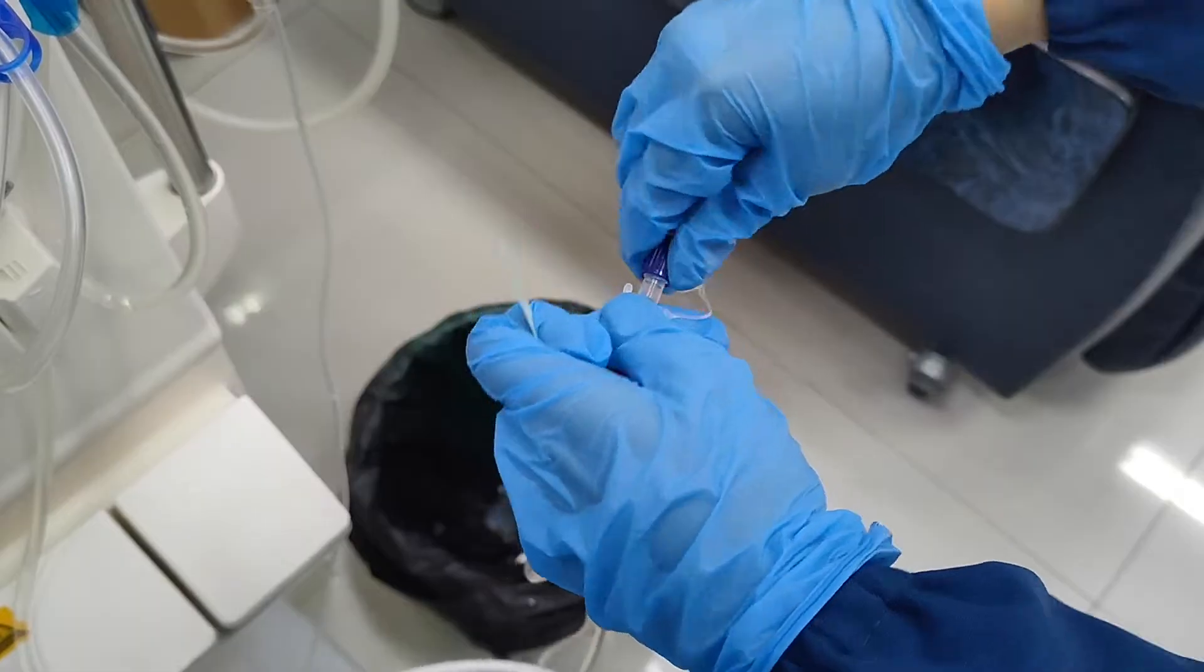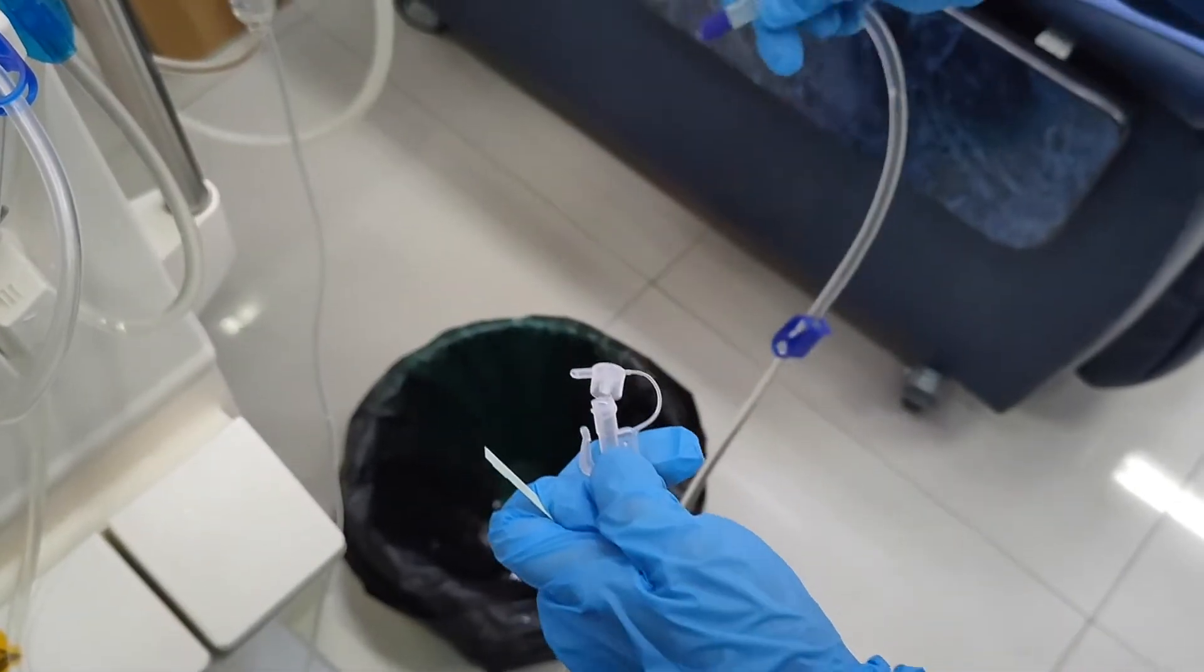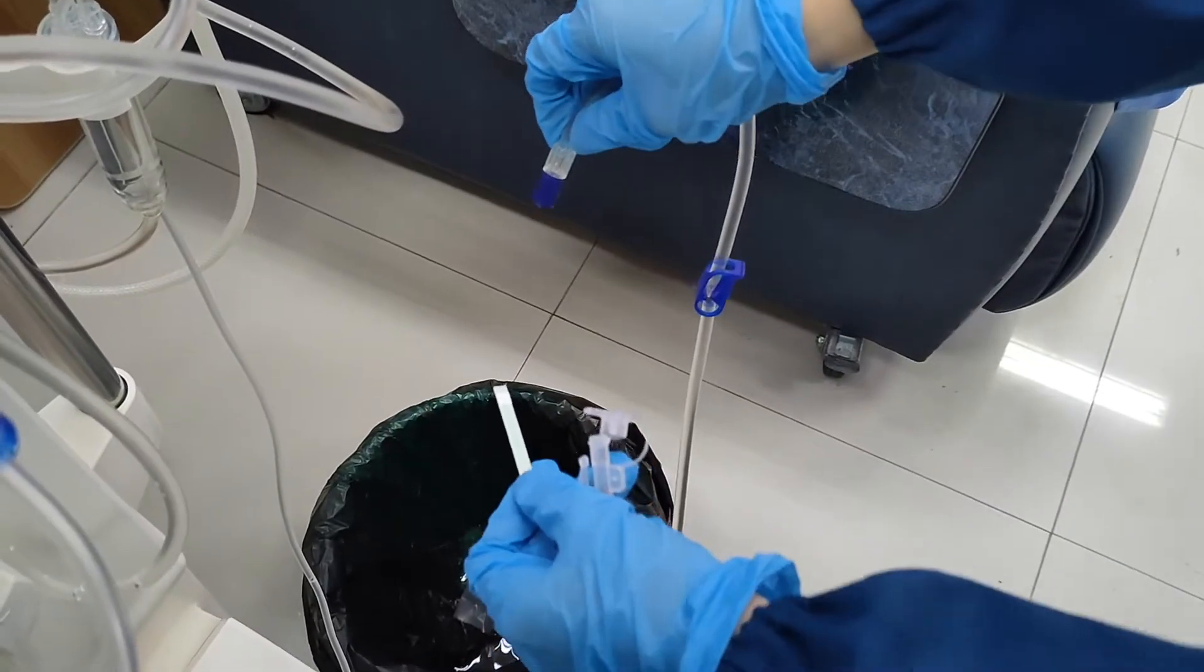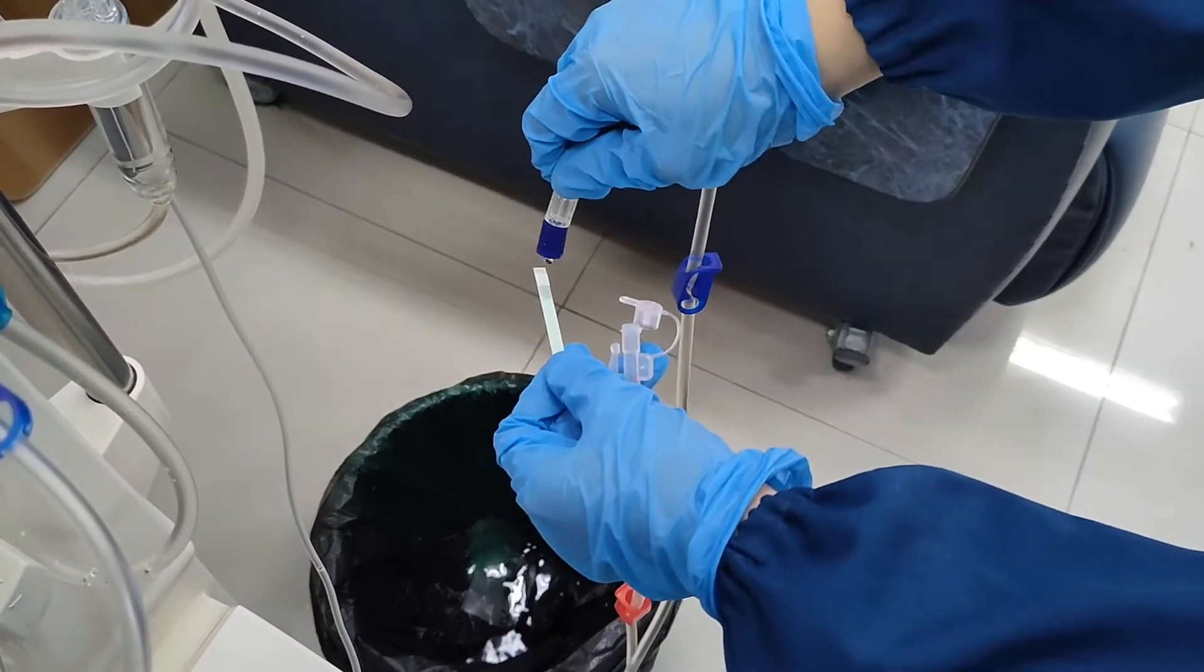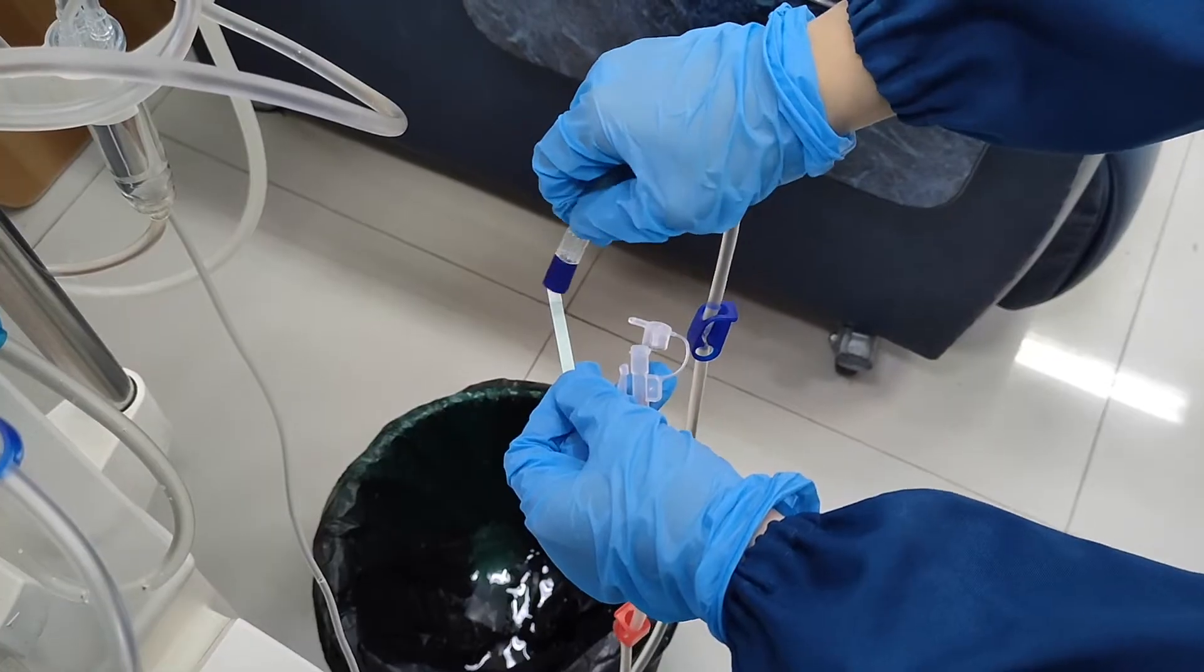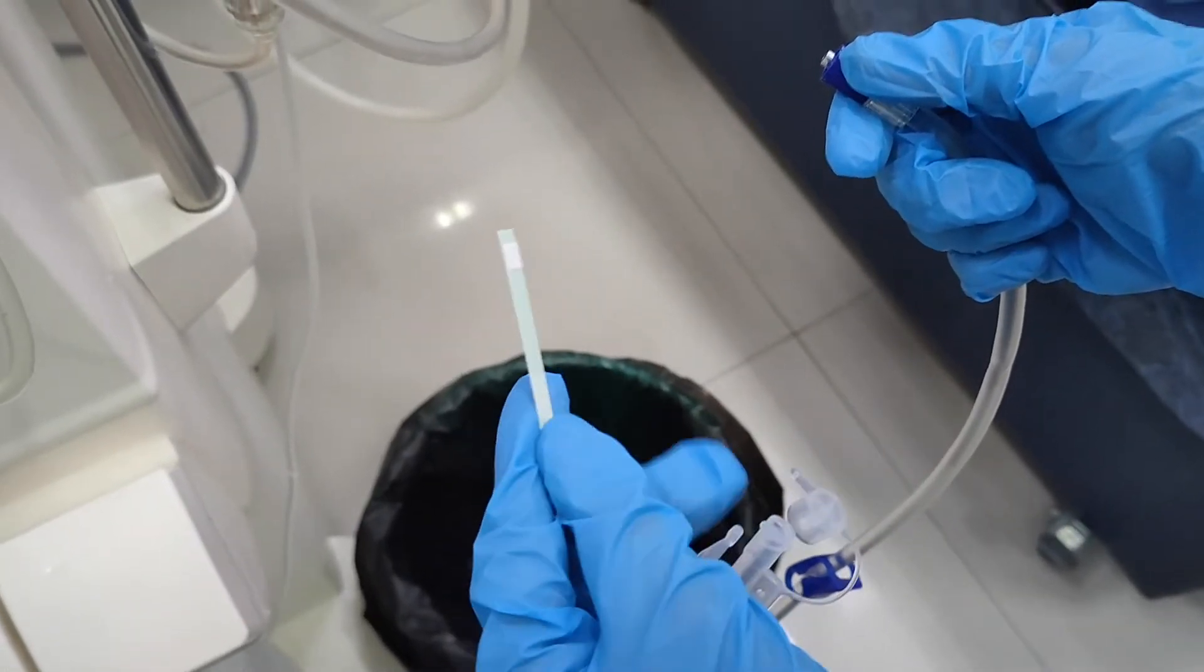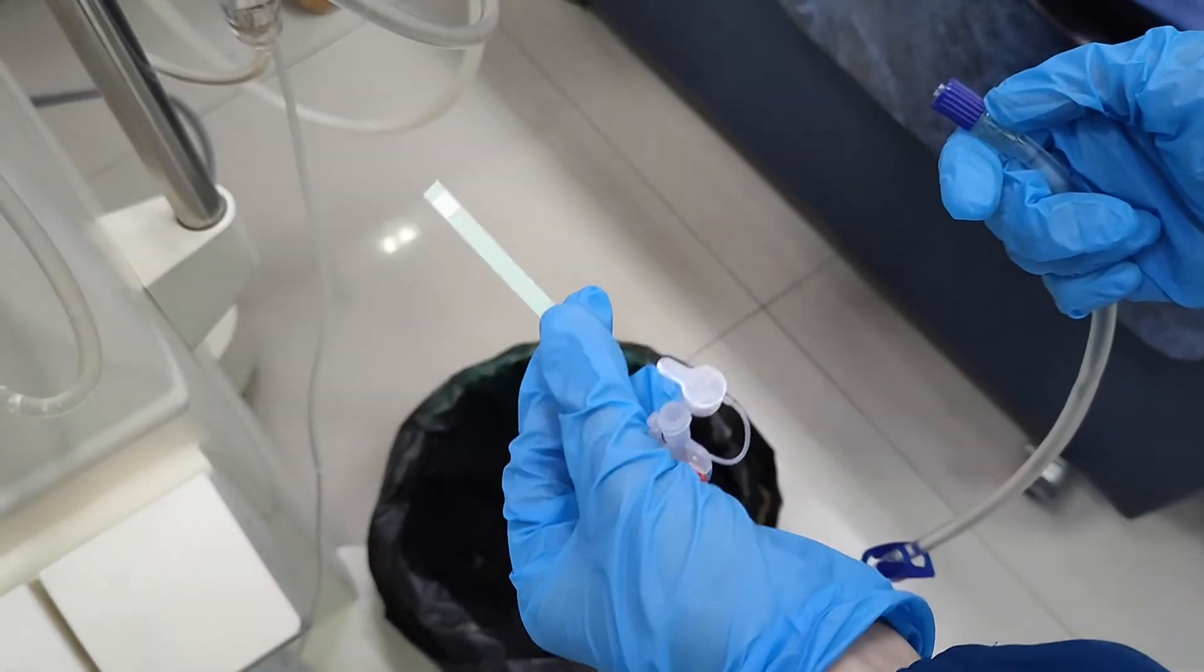Before starting the HD treatment, conduct a residual test to make sure that it is safe for the patient. This is done by removing a few drops of NSS first, then one drop for the test strip. When it is white, it means it is safe to use by the patient.